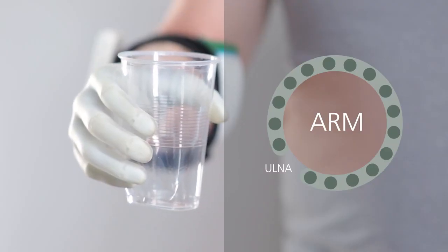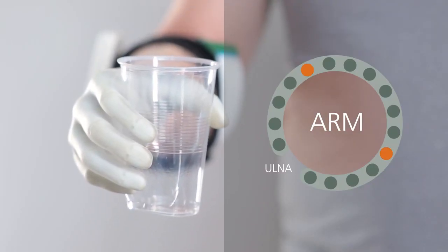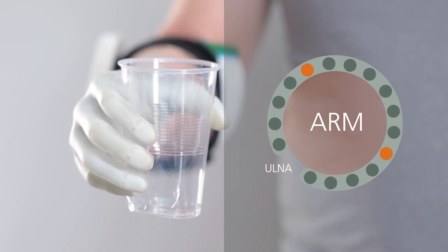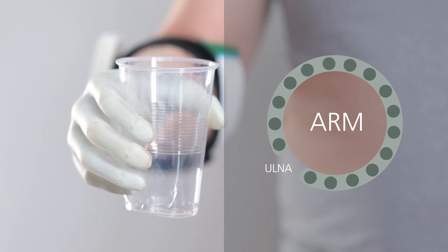Separation of proprioceptive from force feedback can provide valuable information when grasping a squeezable object. The user is simultaneously informed of the force increase and compression of the object.